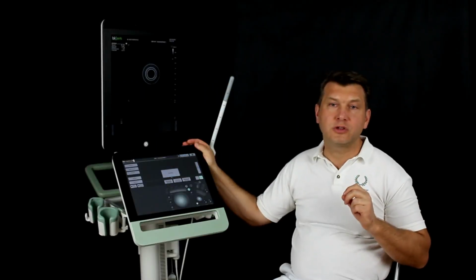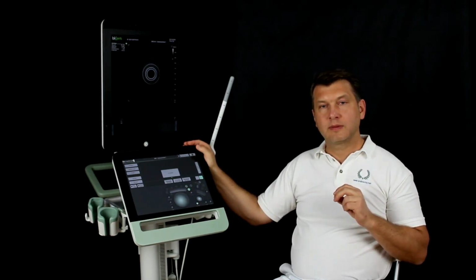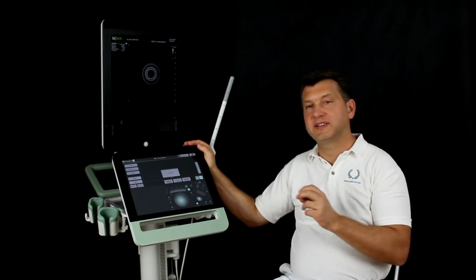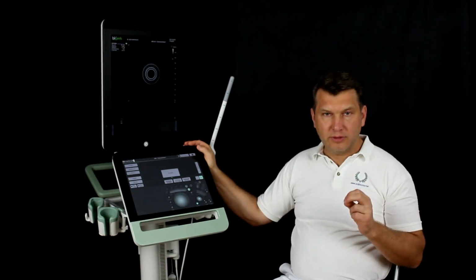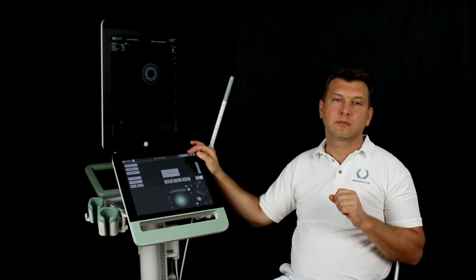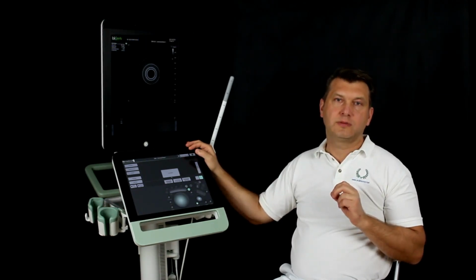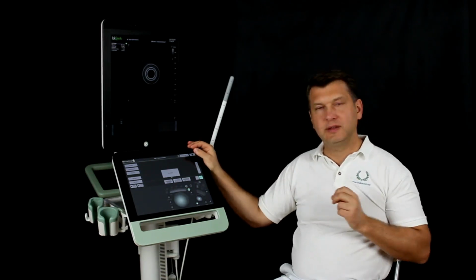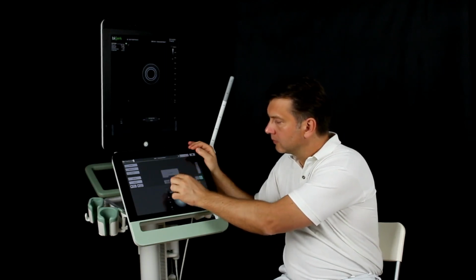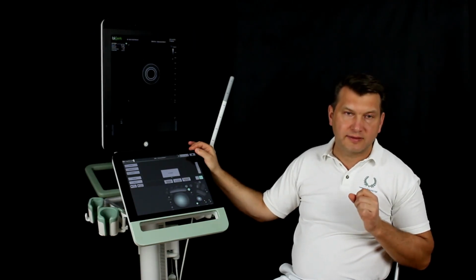So finally, how should I choose my settings for the 3D sonography of the anal canal? Megahertz, overview 10 MHz. Detail recordings, sphincter for example, 16 MHz. Depth and width, depending on the position of the organ to be examined, 1 until 5 centimeters. Resolution as long as possible remains in this scanner in standard position. Distance or spacing 0.2 millimeters. Acquisition time then will be about 60 until 90 seconds.